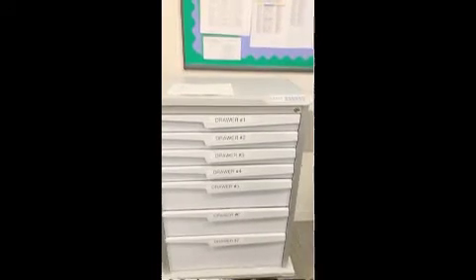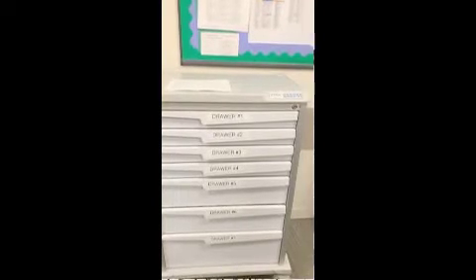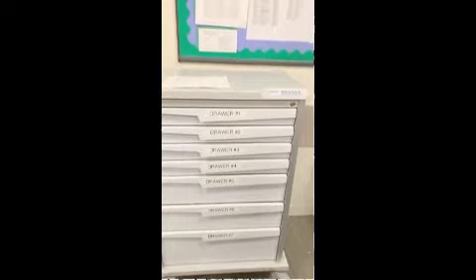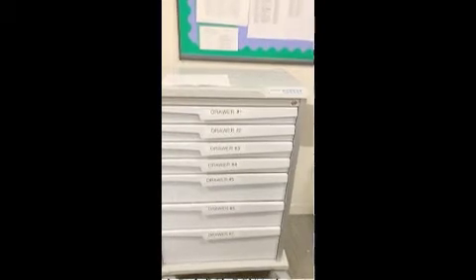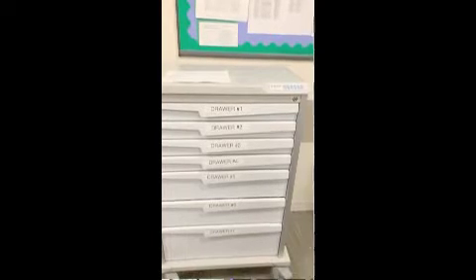2019 Medical ICU Airway Cart instructional video. The purpose of the airway cart should be for an emergent airway in the medical ICU only. The airway cart should never leave the medical ICU. In the event of an intubation, the cart should be stationed outside of the patient's room.